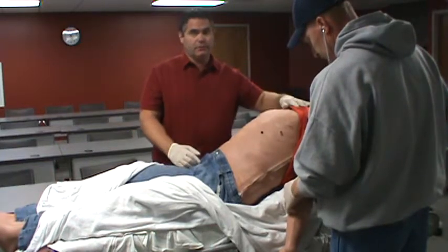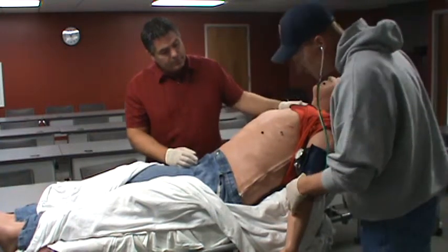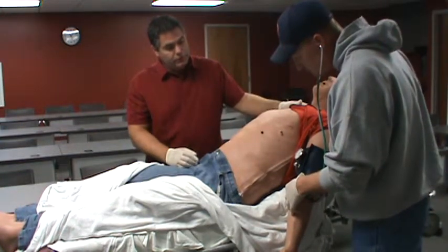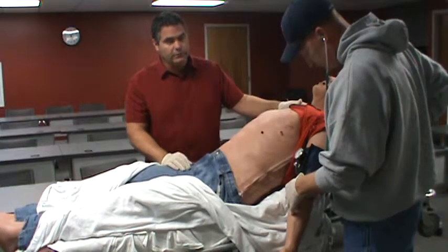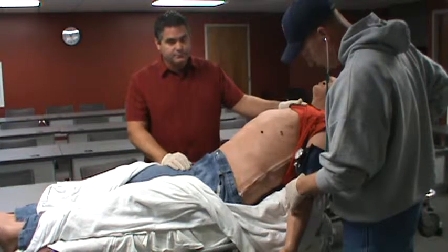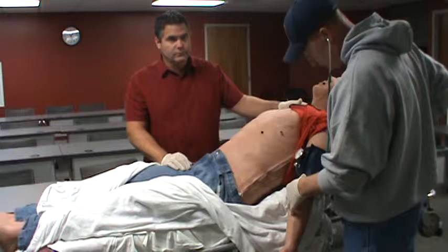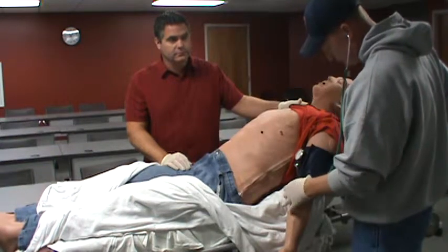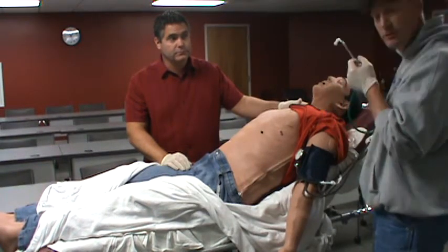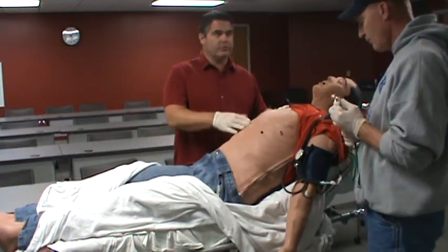As you can see, it's right at the AC spot. We do calibrate this periodically, so it should be very accurate to what the simulation is programmed. Also, when Rob was taking the blood pressure, did you hear anything? He had the pulses. Did you hear the compressor kick in? Yes.